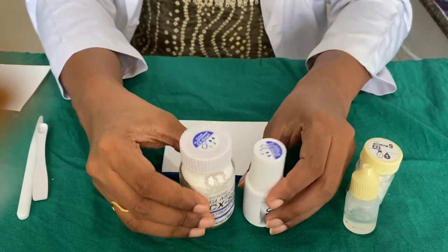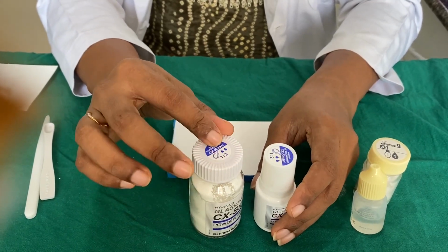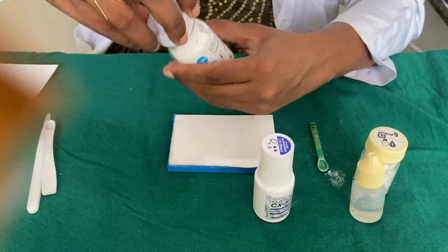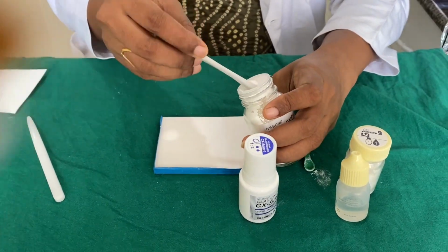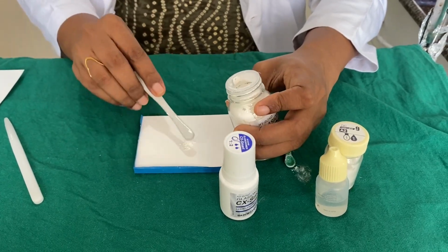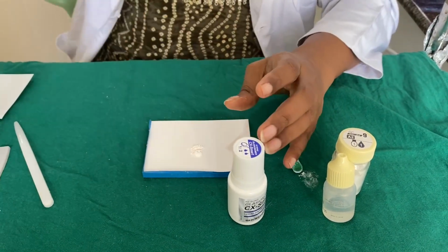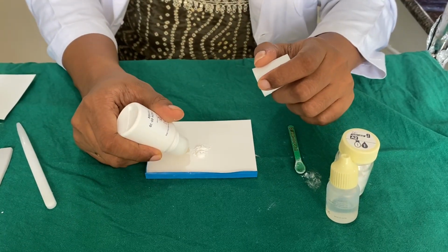So this is type 1 glass ionomer cement. Type 1 is used for luting crowns after root canal therapy or any FPDs. So let's start with the manipulation of type 1. Because it's used for luting, we need to have thinner consistencies of these materials so that they can flow in between the crown preparation and the crowns that we have prepared.